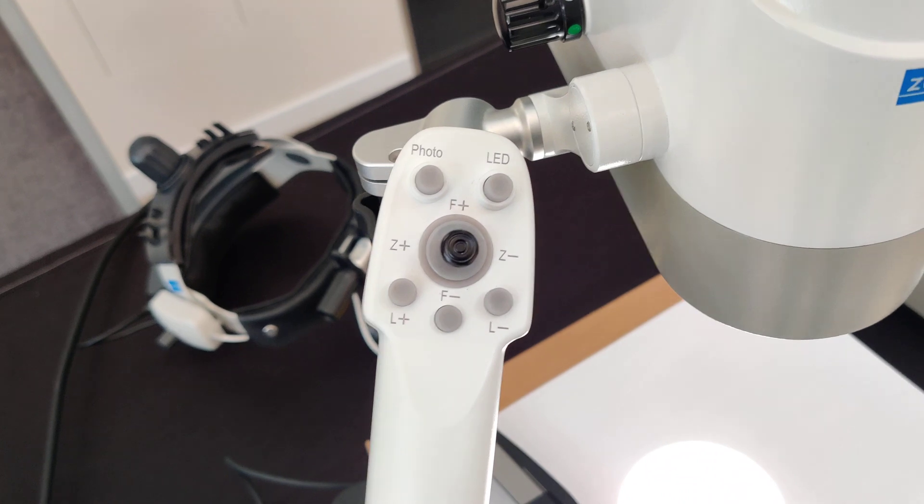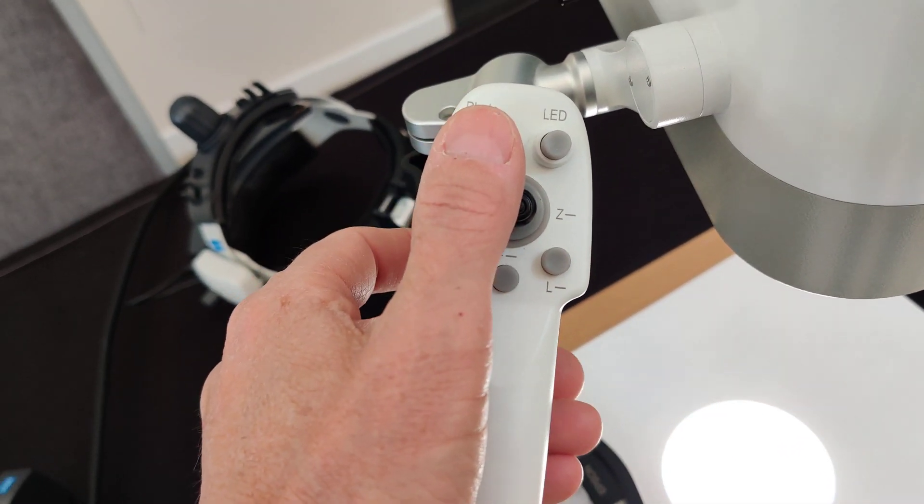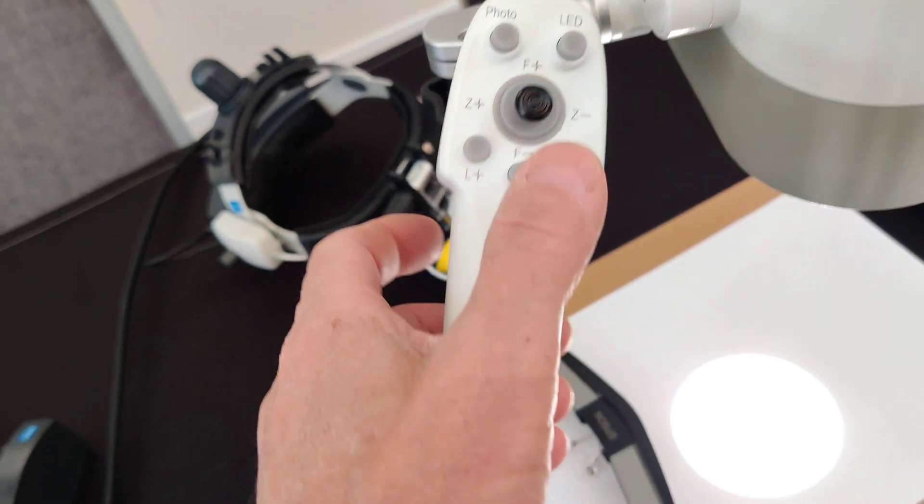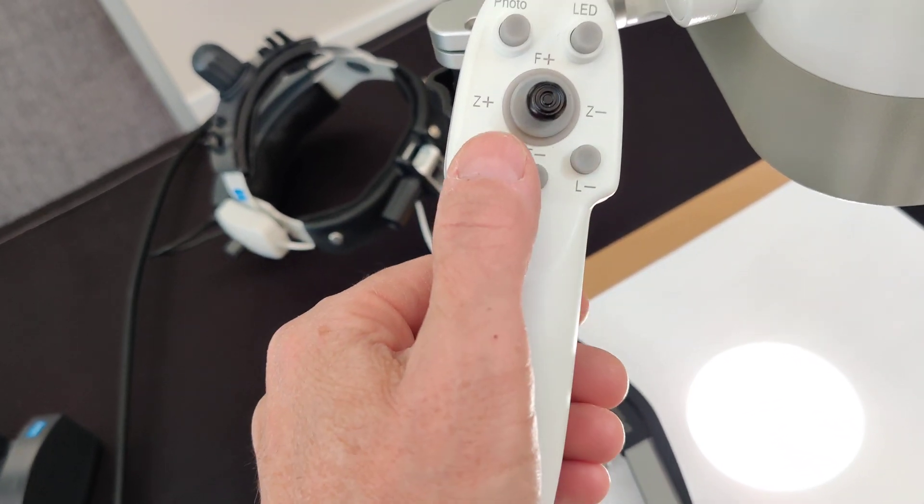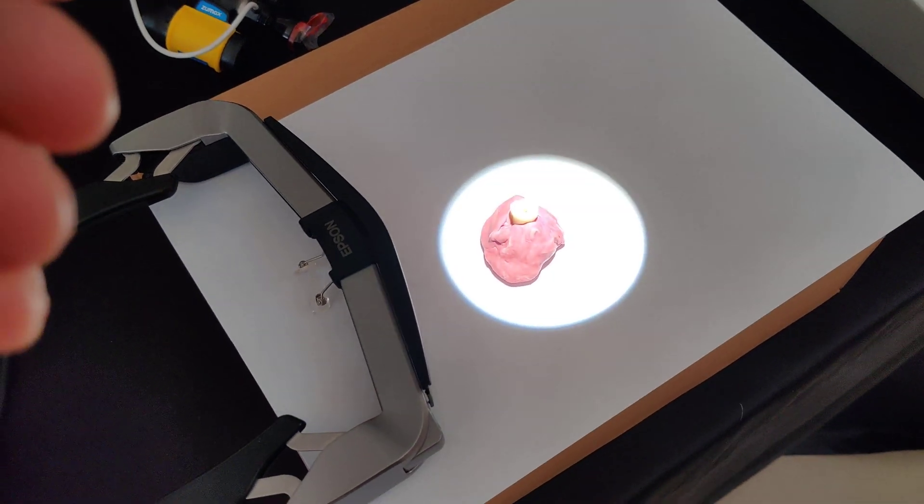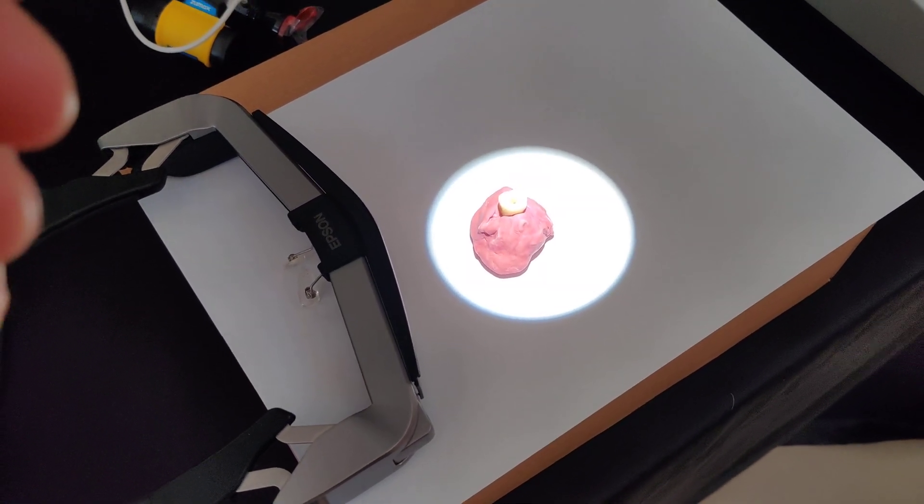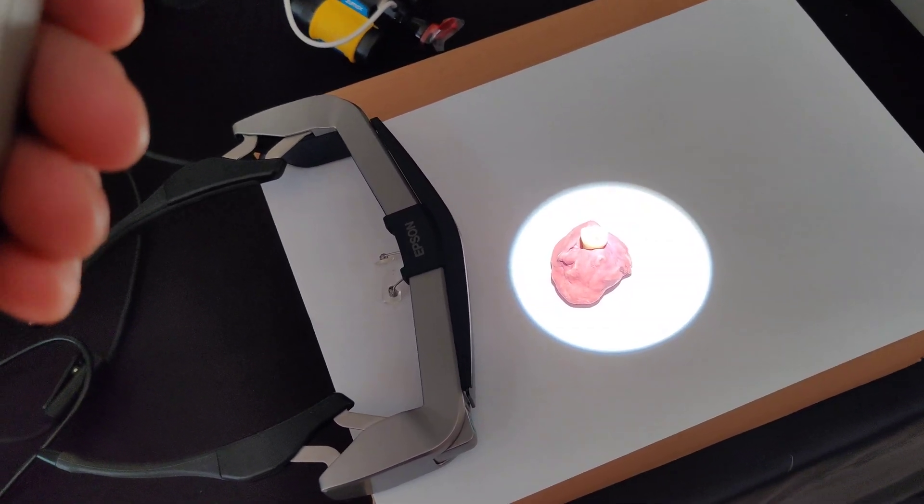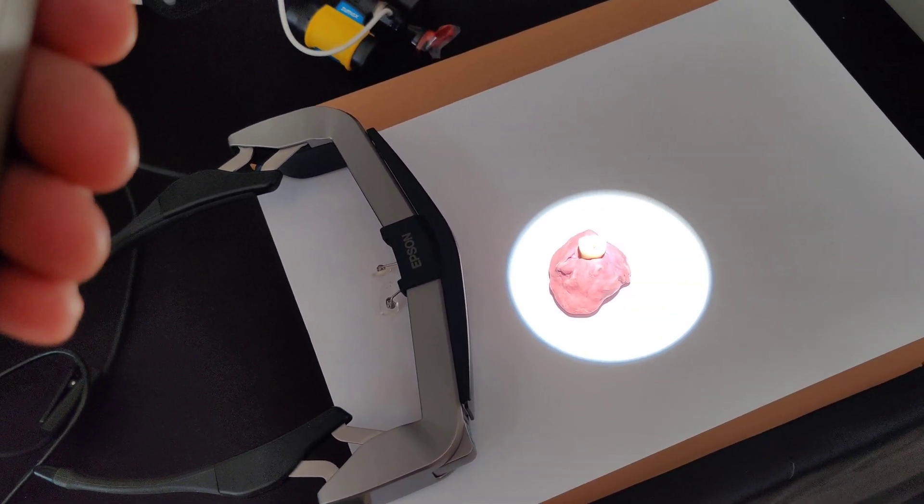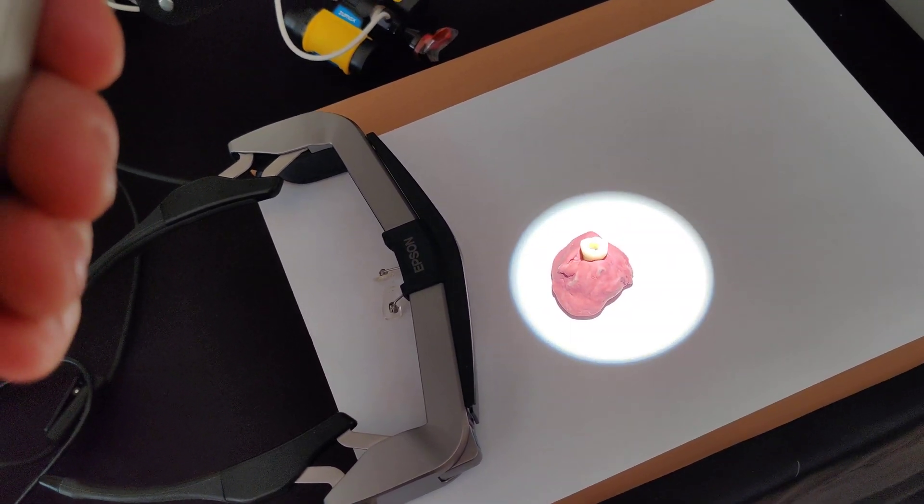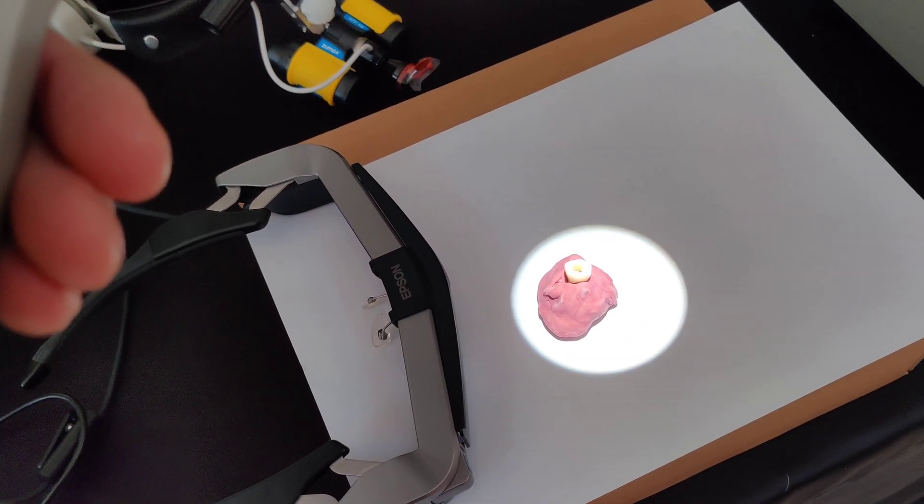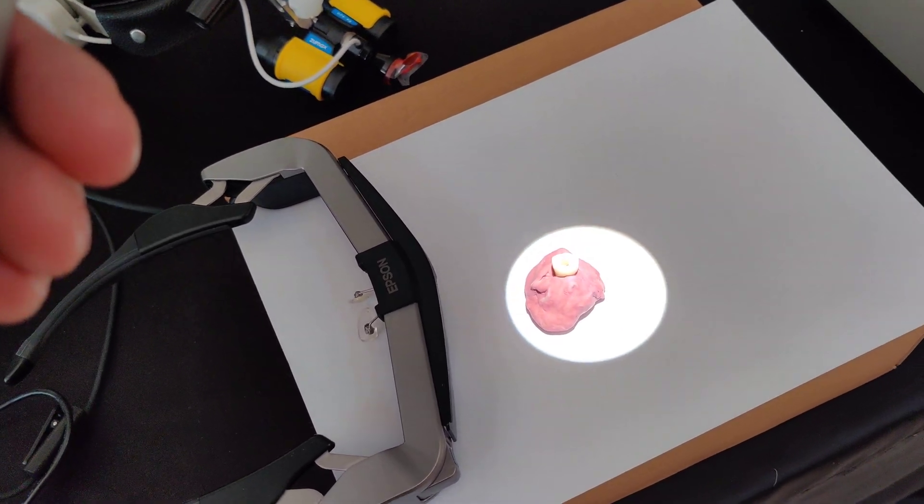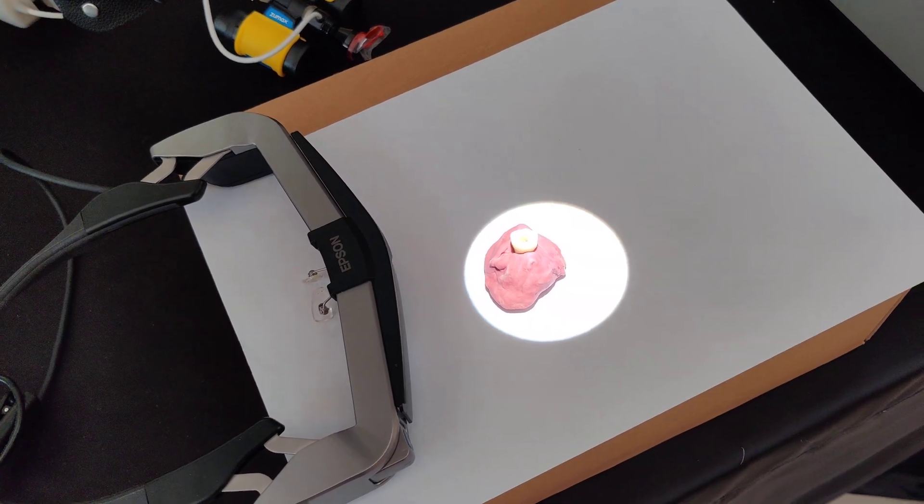And left and right the magnification. Then this is the photo that we saw before. This is an LED zoom magnification, the light intensity plus here. If we increase the zoom, you see the field of the light is decreasing so it's concentrating. We decrease the zoom like this and you see that the light range is larger.